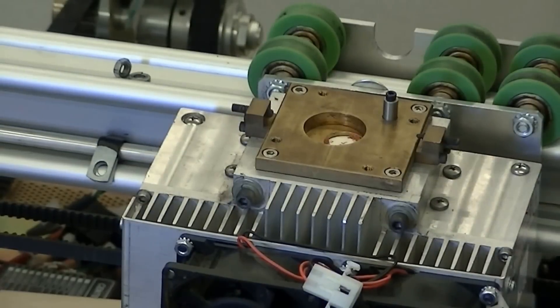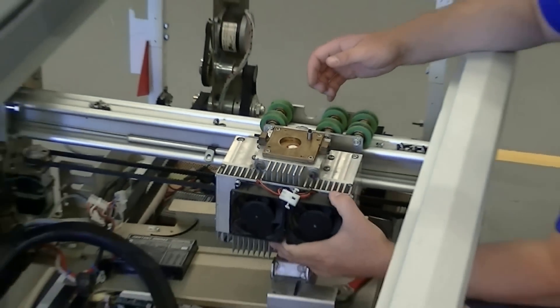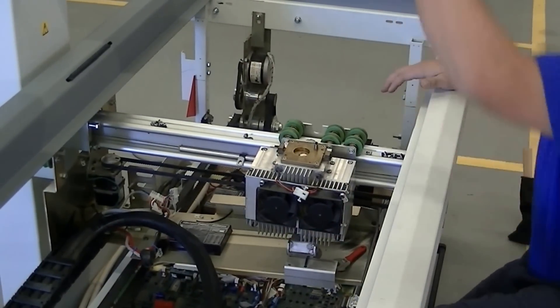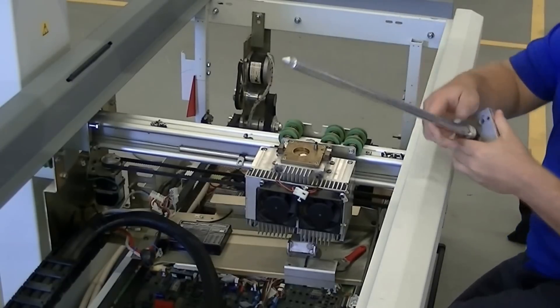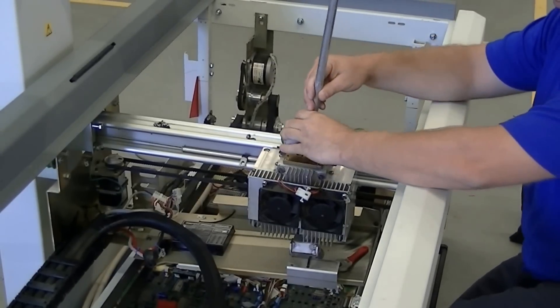Okay, so now the tube is on the rail, but it's still loose. Now we will use our alignment rod and extension to align the screw.